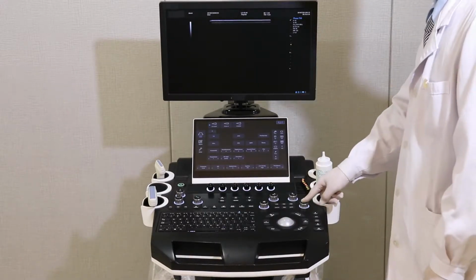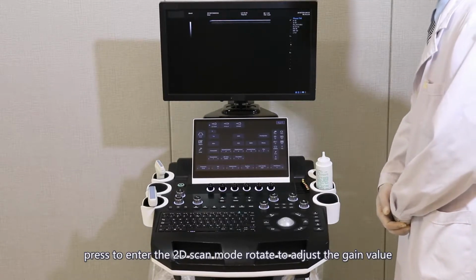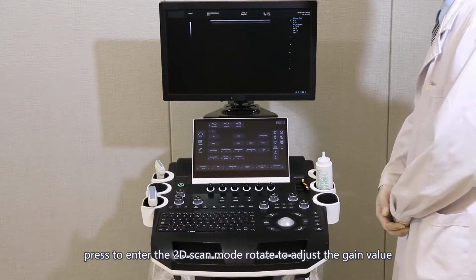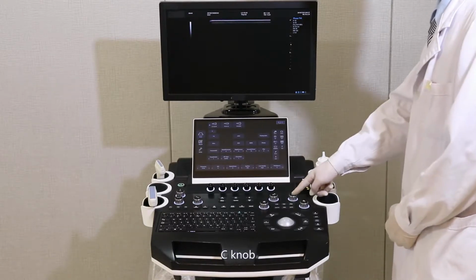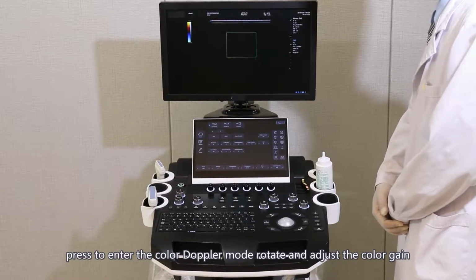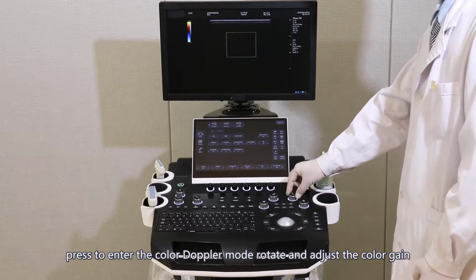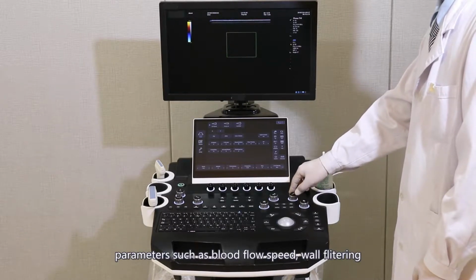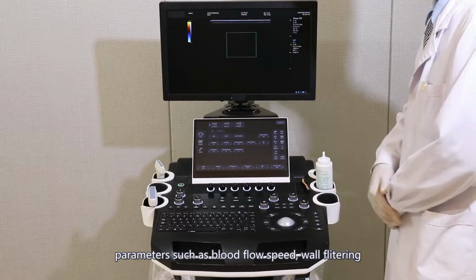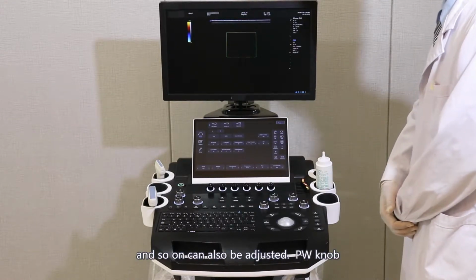B knob. Press to enter the 2D scan mode. Rotate to adjust the gain value. C knob. Press to enter the color Doppler mode. Rotate to adjust the color gain. Through the touch screen, parameters such as blood flow speed, wall filtering, and so on can also be adjusted.